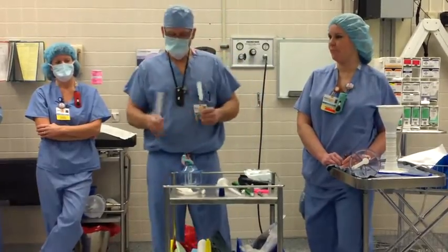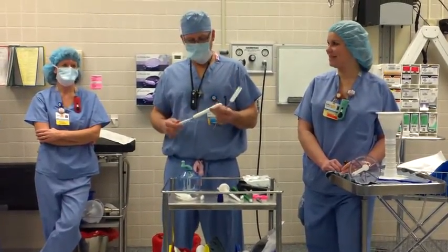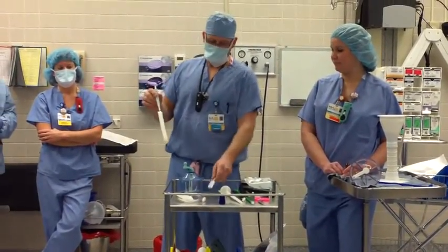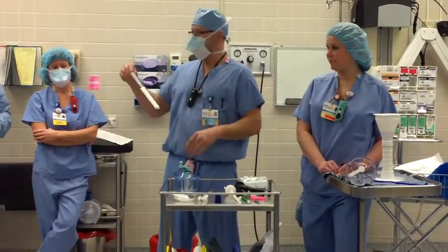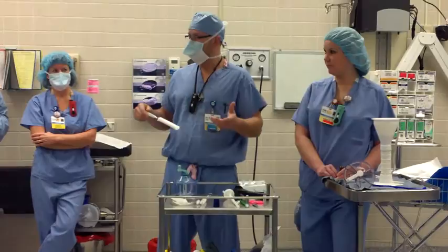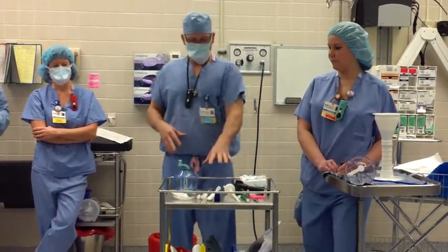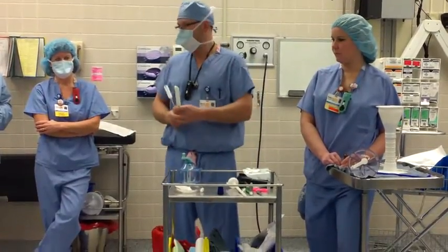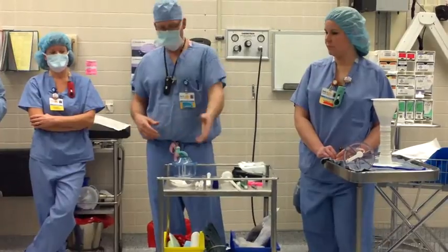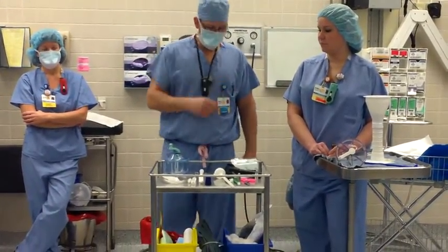This big bottle brush comes in that kit. And this — they call it the power tampon. Some of the doctors don't use either one of these. It just depends on if they're in a hurry or if they don't think the patient's bleeding a lot, then they may not use it.